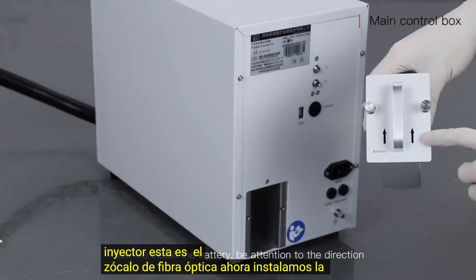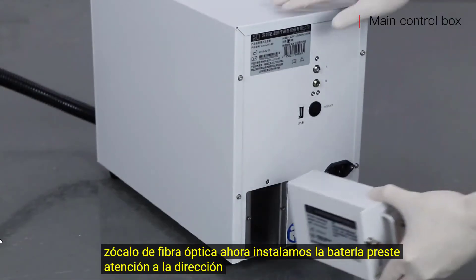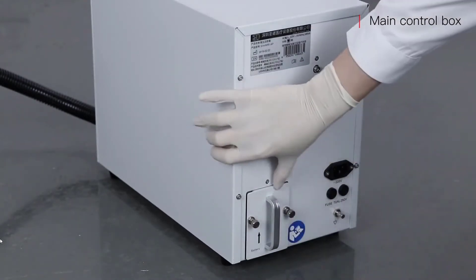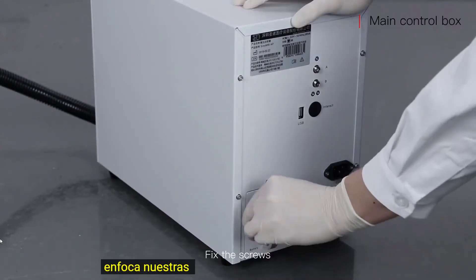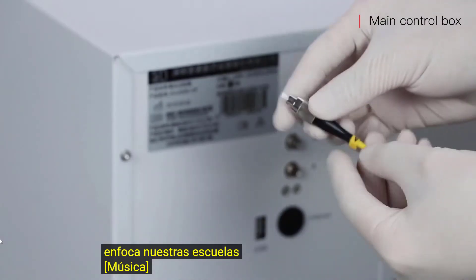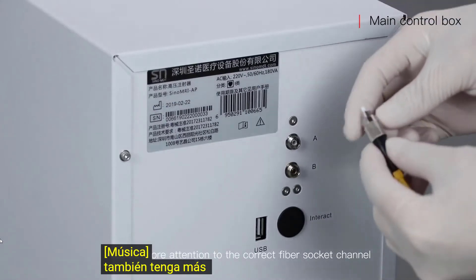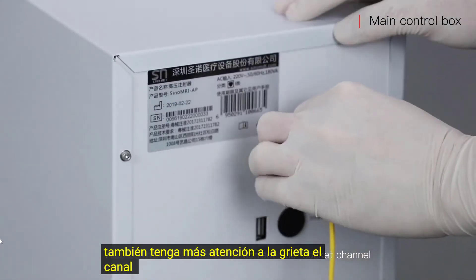Now install the battery — pay attention to the direction. Fix the screws. Also pay attention to the correct fiber socket channel.